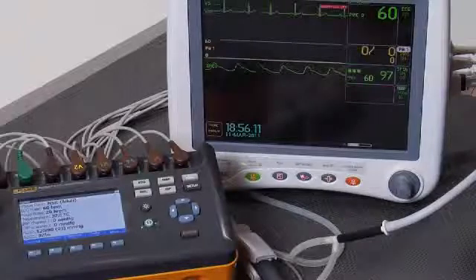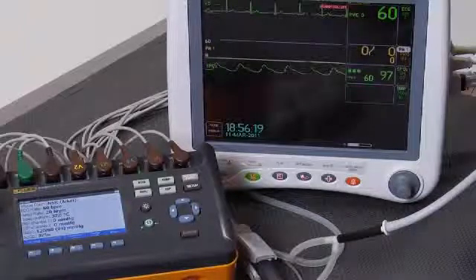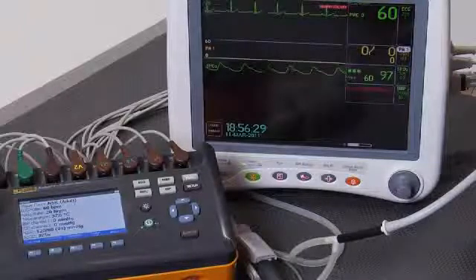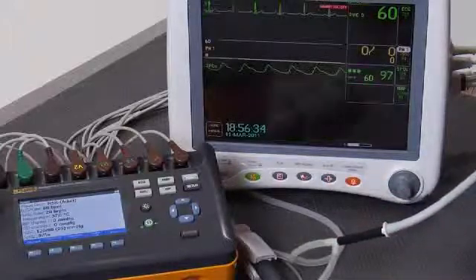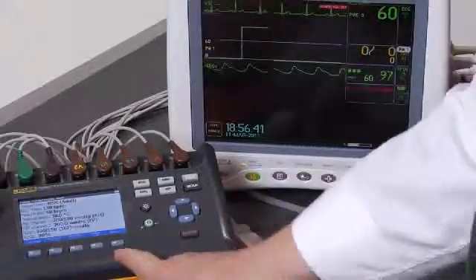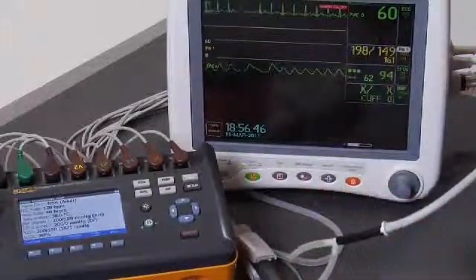We will compare the displayed values on the ProSIM 8 against what's displayed on the patient monitor at each set of simulated parameters. Let's begin now. First thing I'm going to do is zero P1 — it is at 0. And now I'm going to pick hypertensive. The simulation will already begin, so I'm going to start a cuff blood pressure reading.